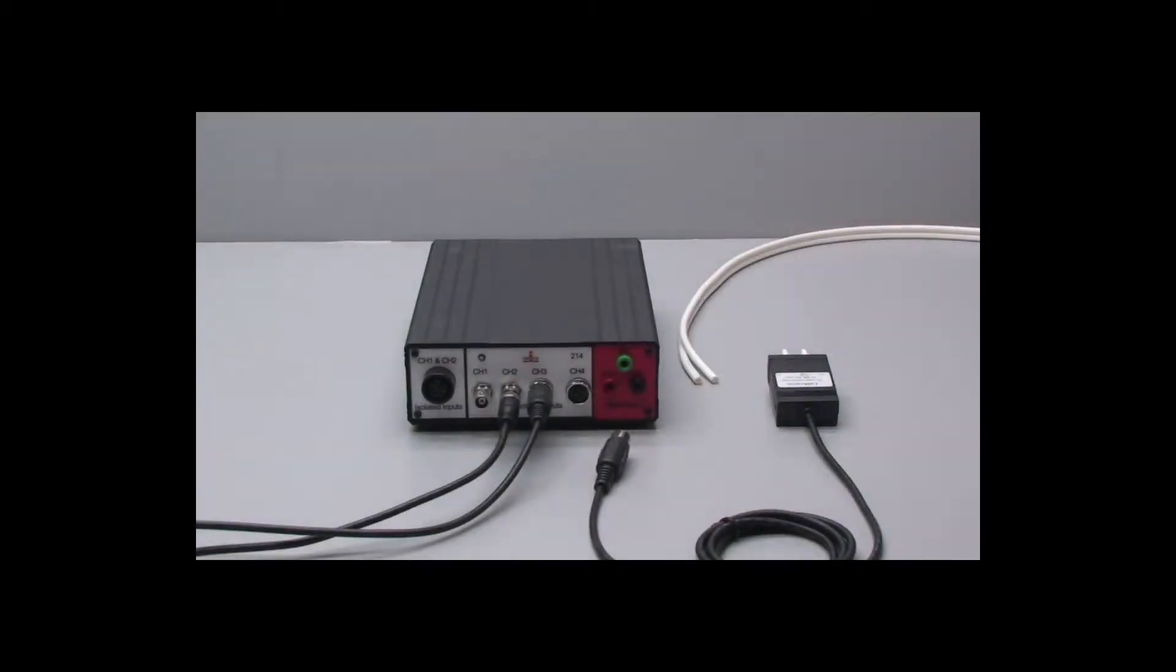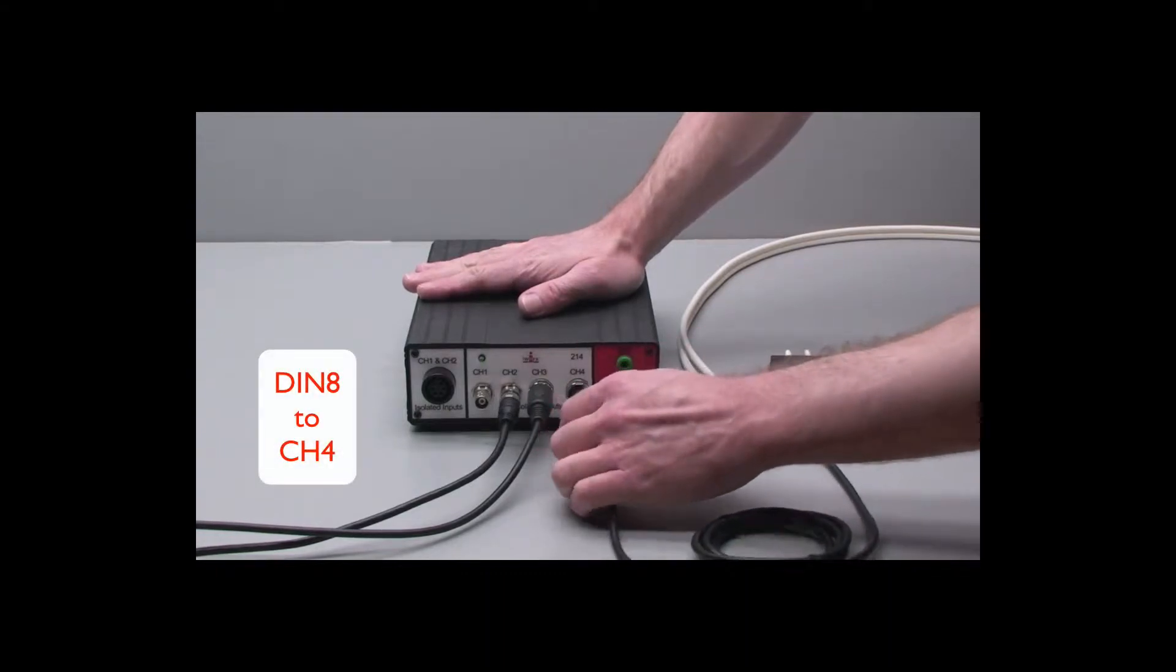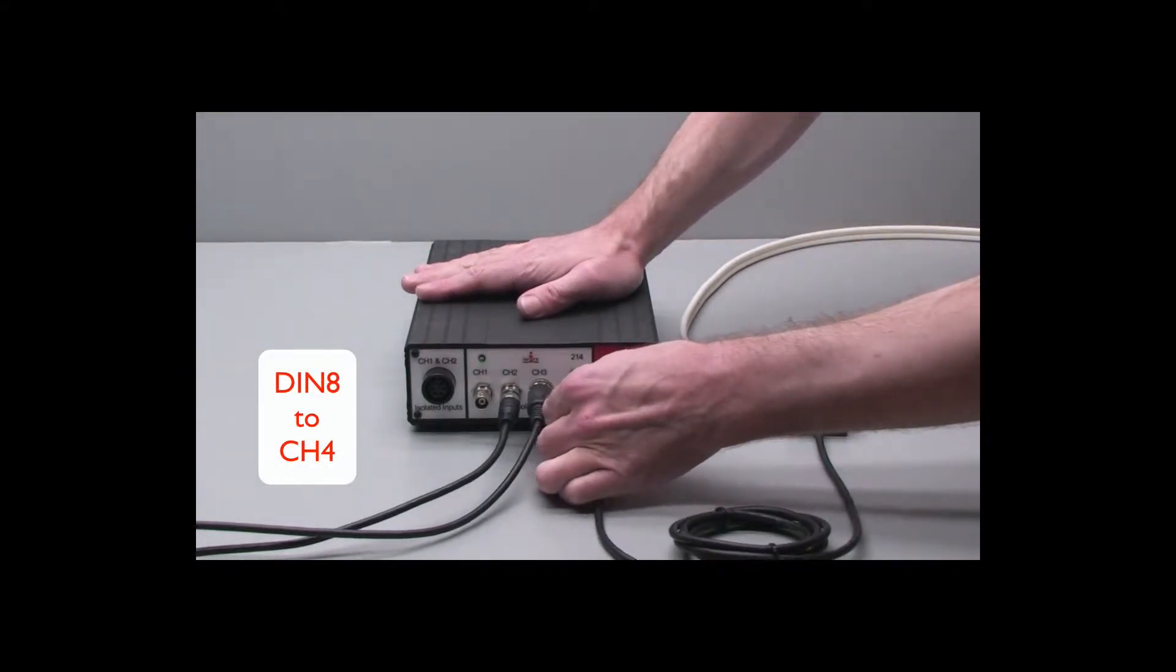For the spirometer sensor, take the DIN8 connector that goes into channel 4 of the iWorks 214.